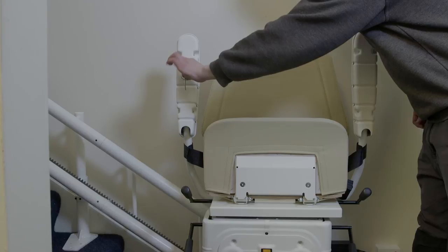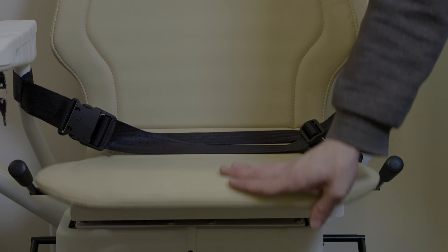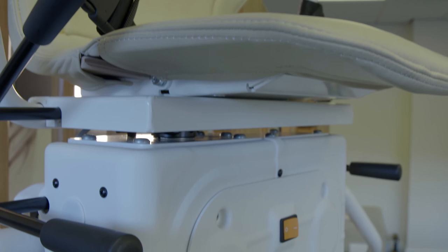Stage 8: Demonstration. Making sure the user is well out of the way of the stairlift with a clear view. Demonstrate all the operational functions of the stairlift, including the seat, seatbelt, footrest and directional controls.